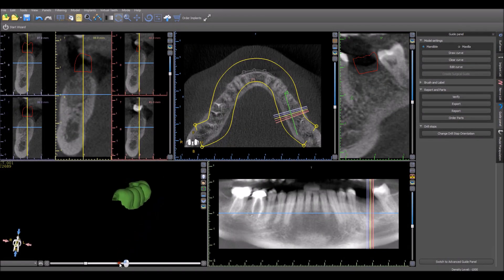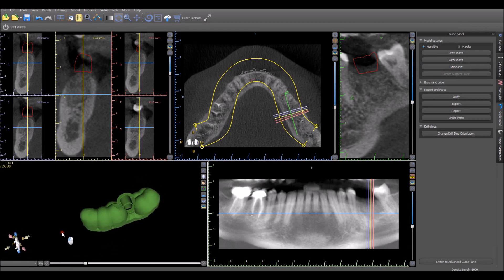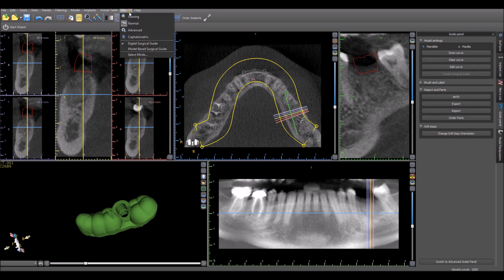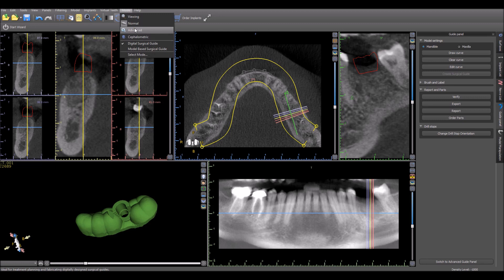So that's the process running through making a surgical guide from DICOM to surgical guide. If you're using a different implant system, then you'll have some different settings and you probably want to use the advanced panel in order to do that. And if you have any questions, then contact us at plan@blueskybio.com and we will help you out.